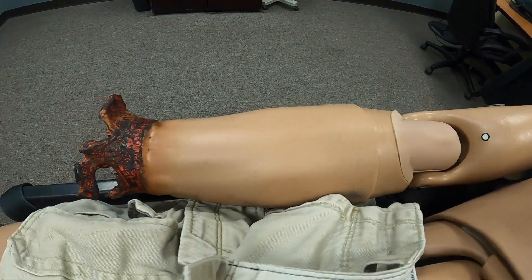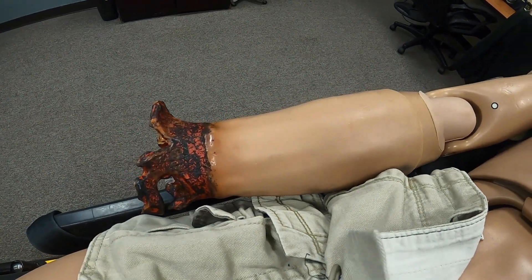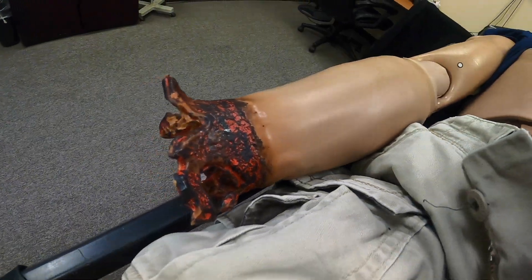Part of the trauma portions, it does have the normal side of the arm, but we can also add amputated parts. On the ends there are ports that, once we fill the mannequin with blood, we can have it represent a severe hemorrhage.